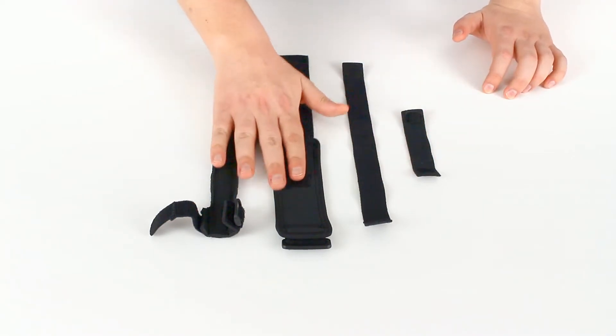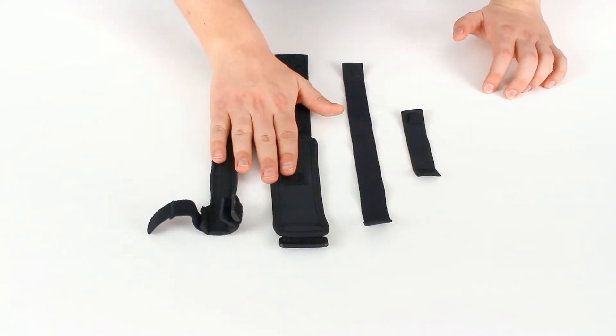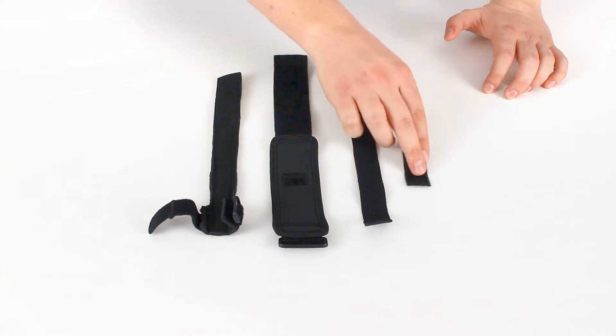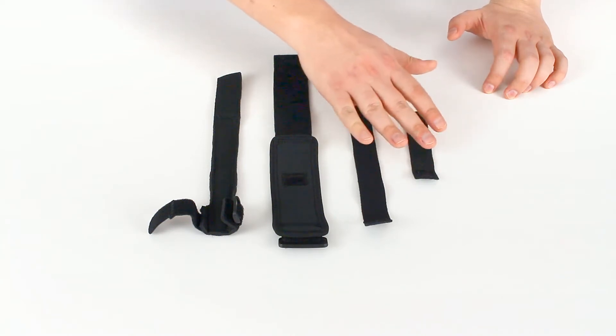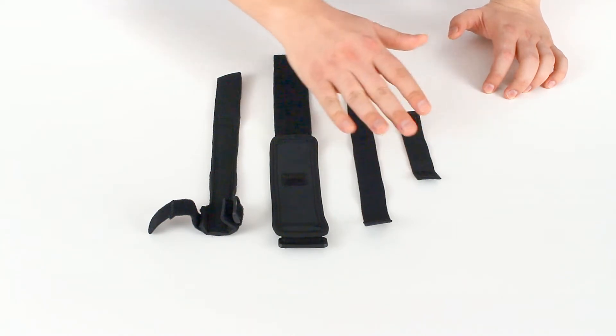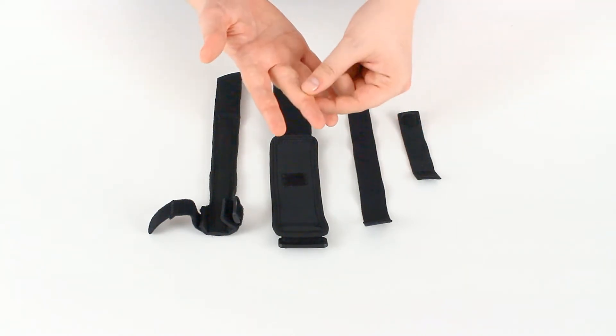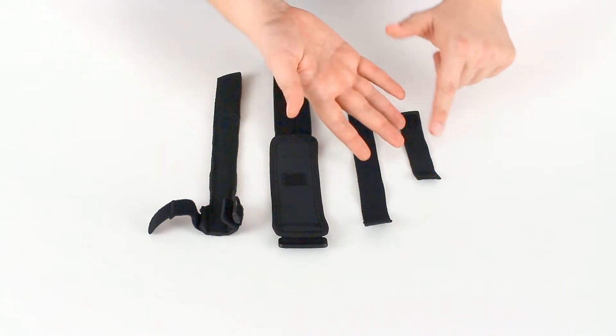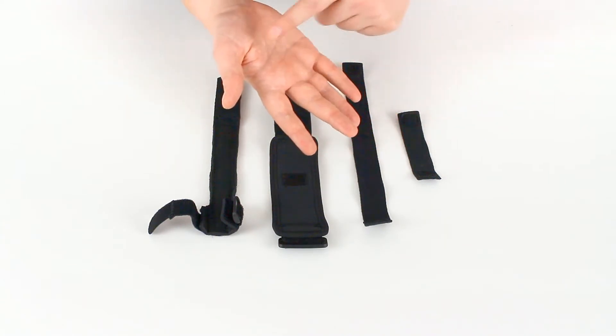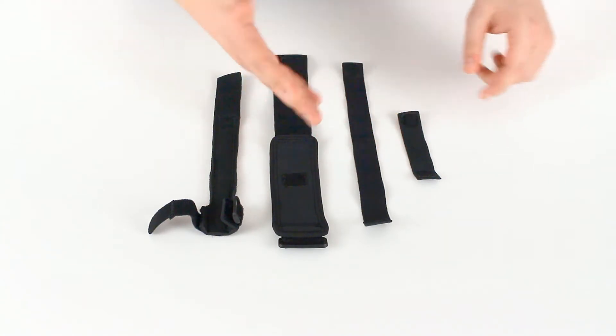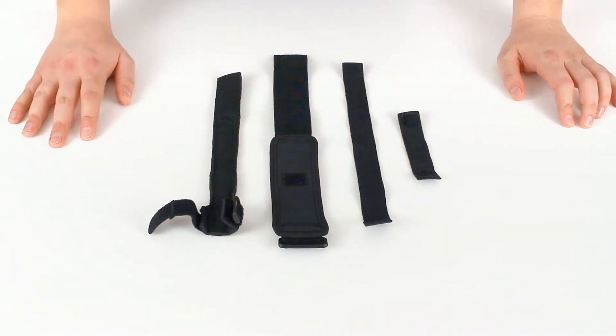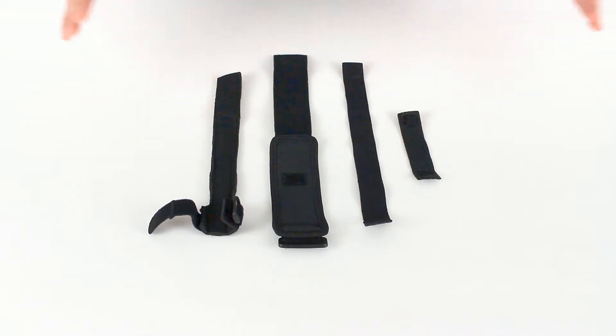The velcro will attach down here and the optional palm strap and finger strap. Now these two can be used with or without either of these two straps. These just add additional compression and stabilization either to your finger or around your palm to stabilize and prevent any movement there.